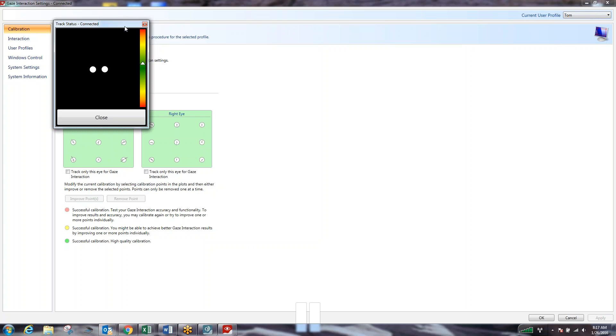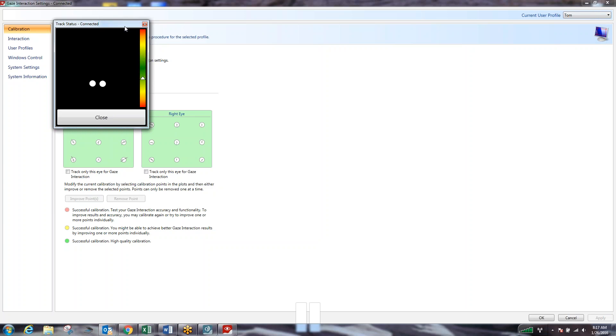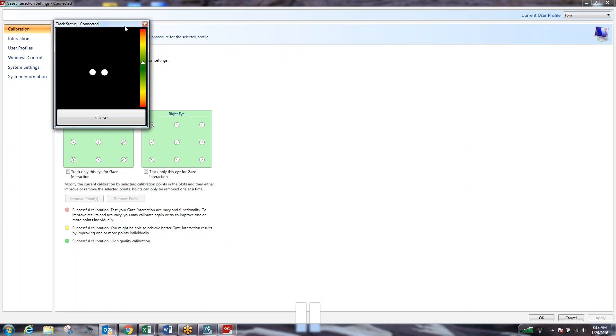Our goal is to get the two circles representing our eyes as close to the center of the black screen as possible. If you see that white triangle on the right hand side, that tells us how close or how far we are from the device. As I move to and from with my head, that triangle goes into different locations. Our goal is to have the device approximately 18 to 24 inches away so that white triangle is in the green location on that bar. This is typically achieved when the top of the device is about at the same level as the client's forehead and is about 18 to 24 inches away.